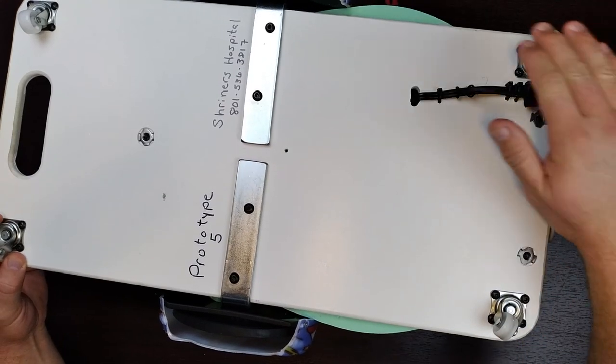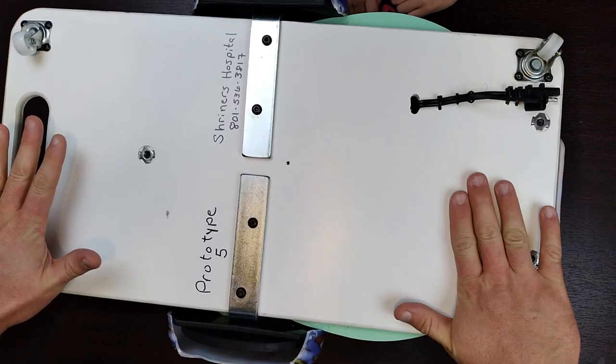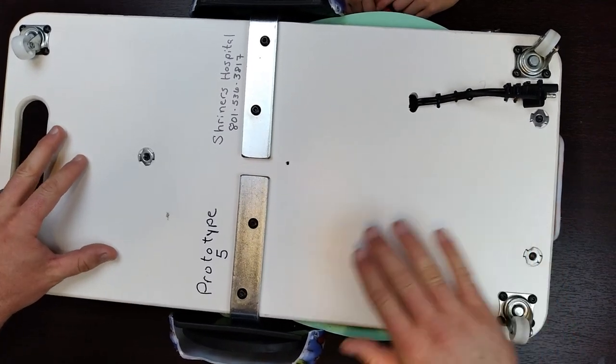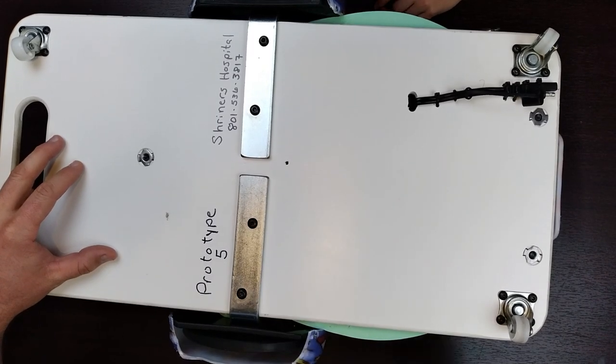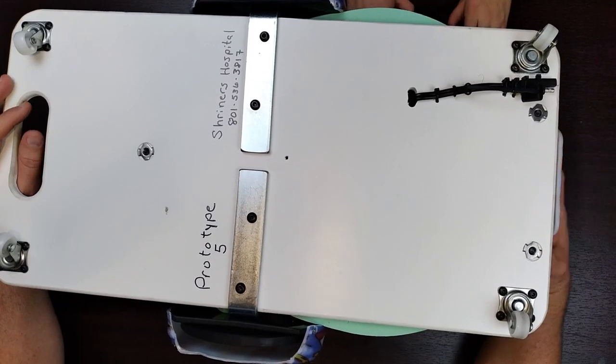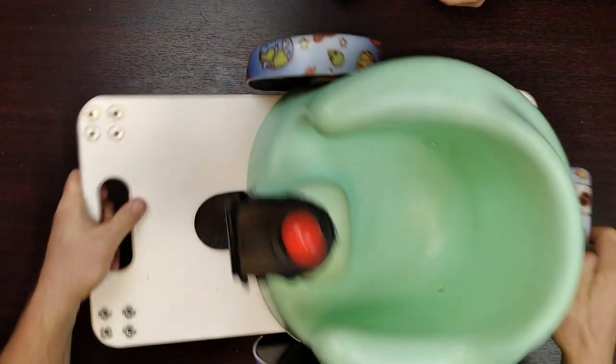On the other side you can see that this is prototype five. These little tiny casters are there - my guess is they're mostly there to help stabilize and be able to sustain most of the weight. Then you have little tiny rollers or rubber rollers here connected to motors, which we'll open up and look at. This looks like a charging port, so we'll get going.